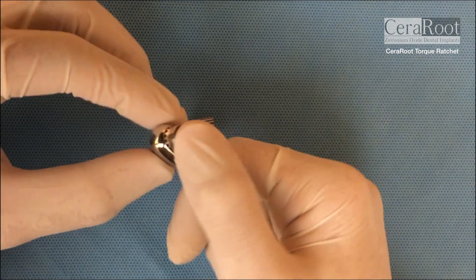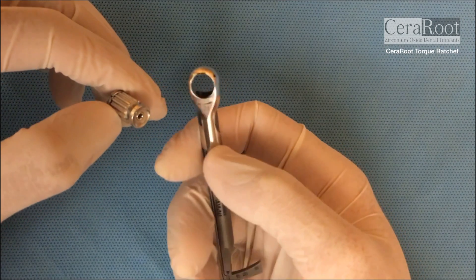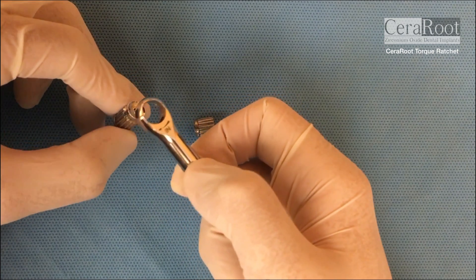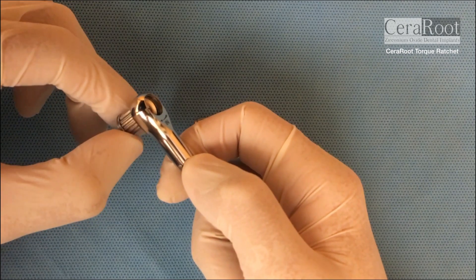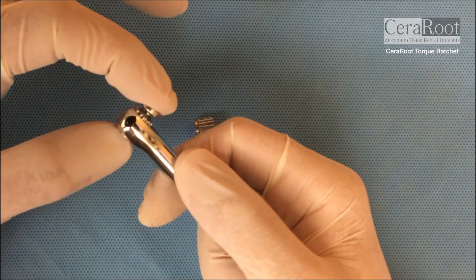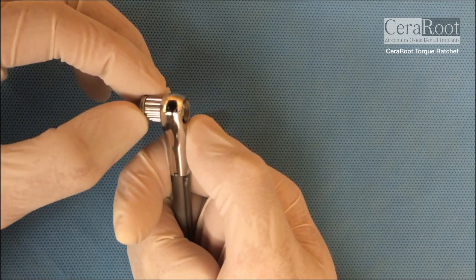To release, you push down and then it comes out. So again, you have to read the word IN and bring the thumbwheel from below like this, then push until you hear a click so it doesn't fall off.